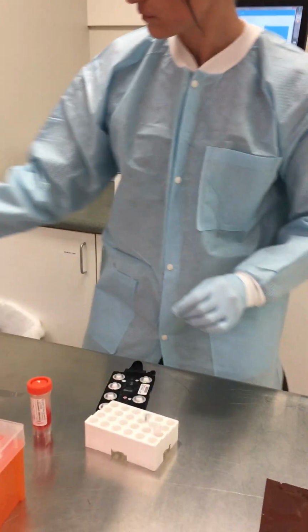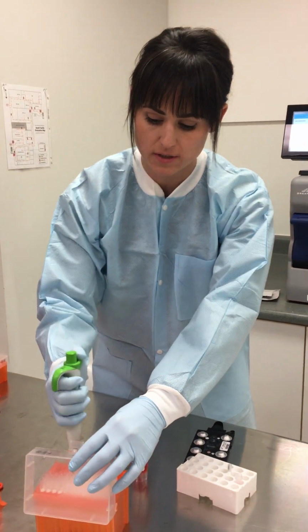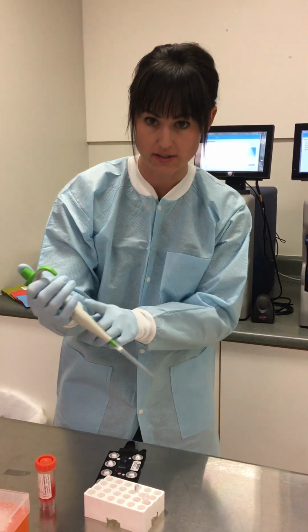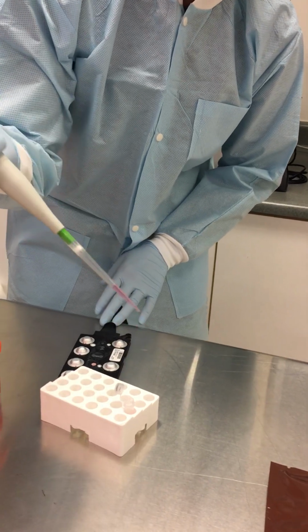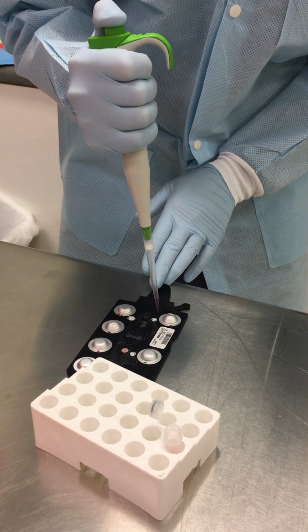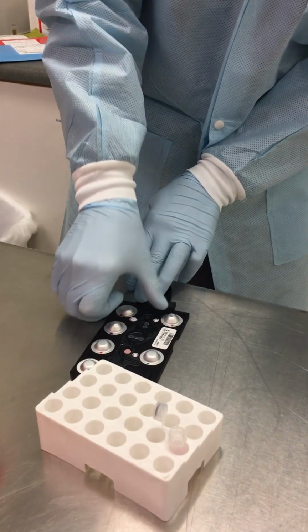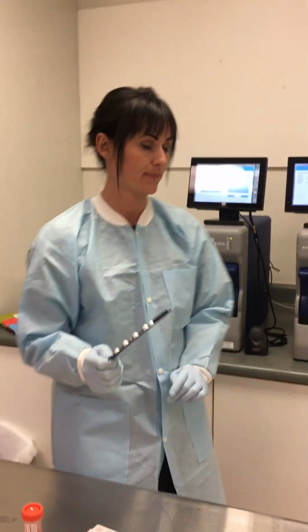Once you have your processed sample, you simply load the cartridge using a fixed volume pipette that we provide at install. For the first time a customer buys a kit, they receive a pipette. And again, it's fixed volume, 250 microliters directly into the sample port, and elute. Once the card is loaded, you close the cartridge, audible snap, and then your card is ready to load.